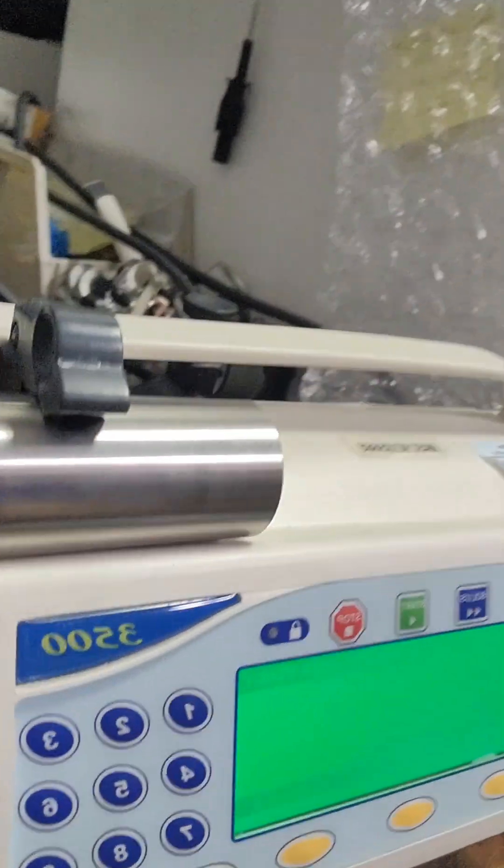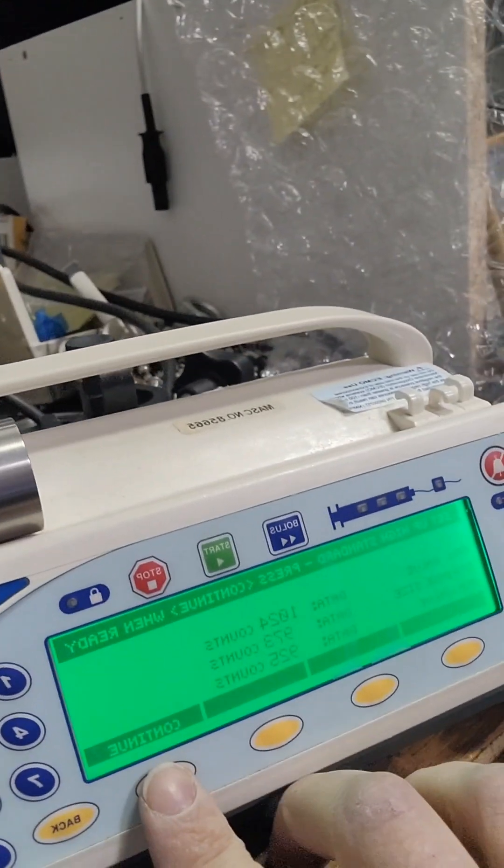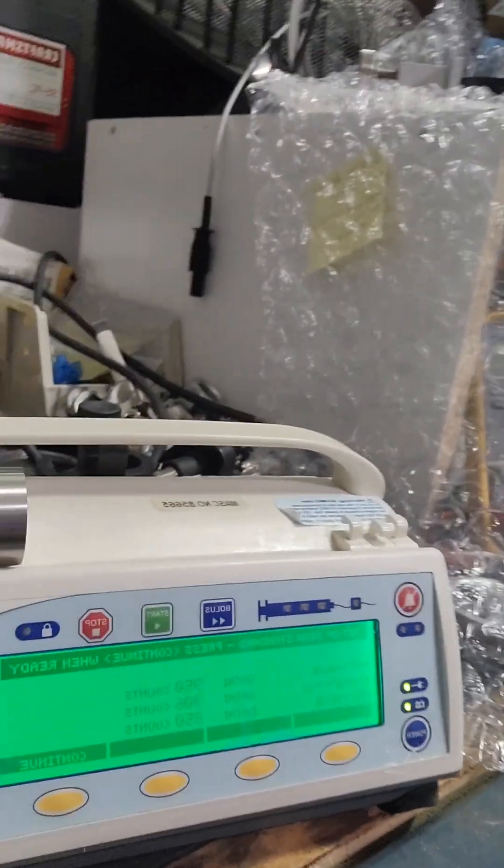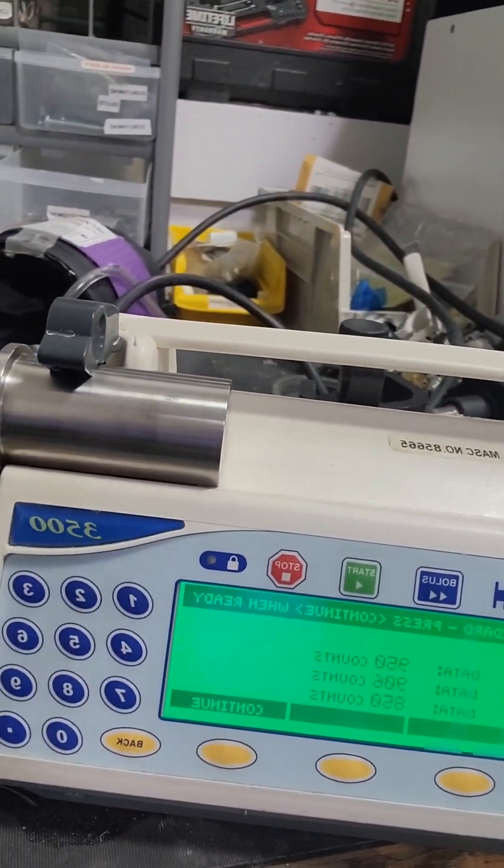Push it in there as far as we can, continue. Hold the flippers open, you press it in as much as you can, continue.